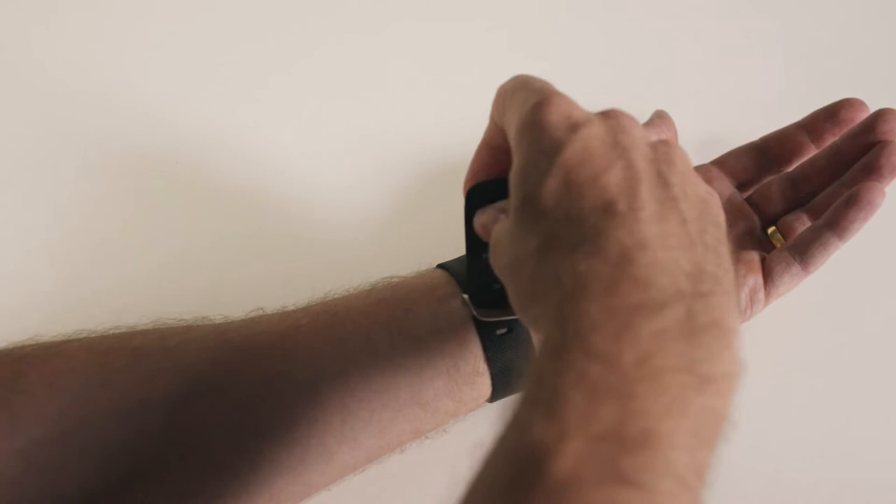The watch device is a pretty standard LED with a photodetector. That LED shines light in and gets light back from the implanted device, and that changes color based on the glucose concentration. The idea is you can measure it as often as you want, and by monitoring more often you can regulate your sugar levels better.